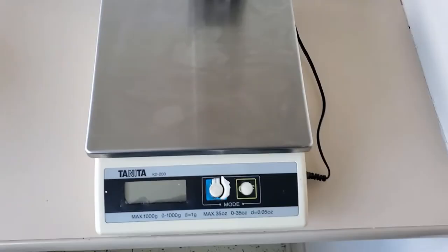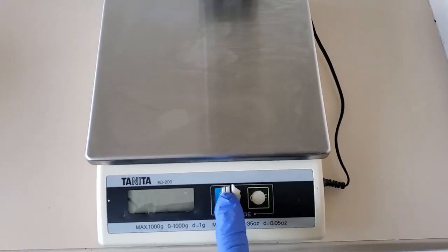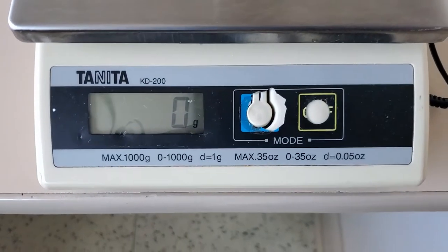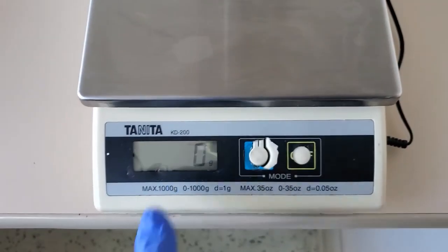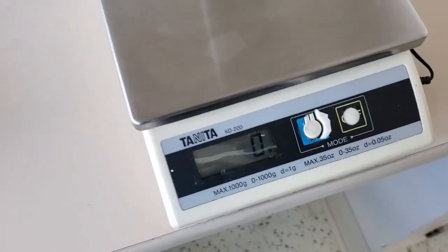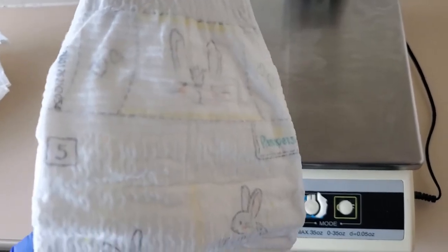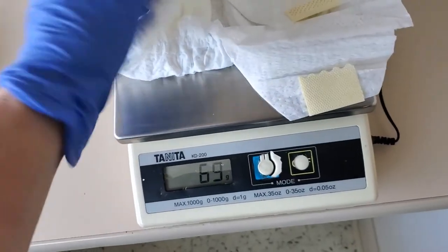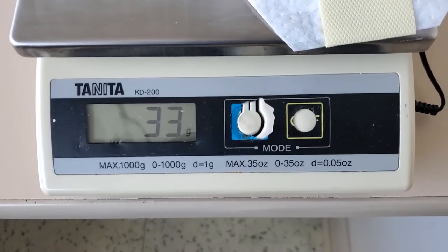Now we're going to turn our diaper scale on. Hit the blue button. It may or may not have a tare surface — if it's there, it says T-A-R-E. Make sure it says zero. Then we're going to get that same size diaper. So for this demonstration, I'm using a size 5. I'm going to put the dry diaper — nothing in that dry diaper — down. You see it weighs 33 grams.